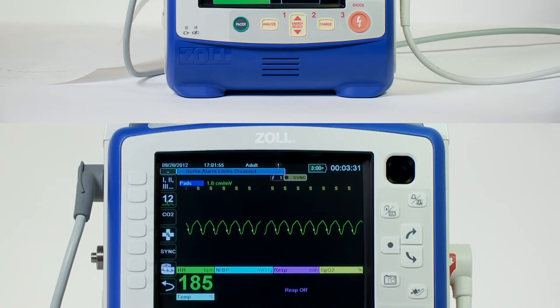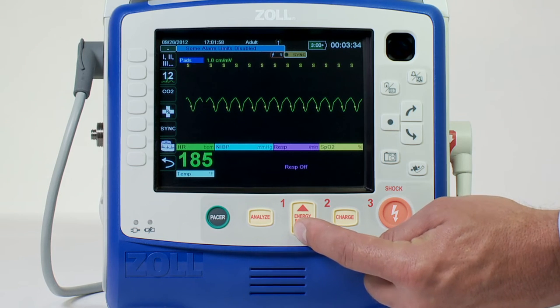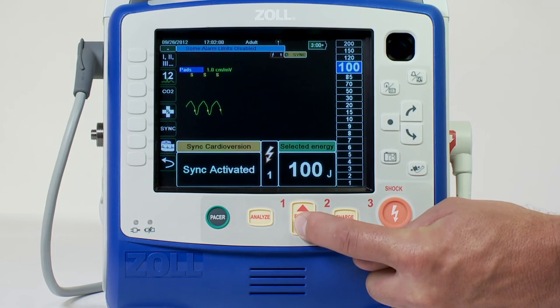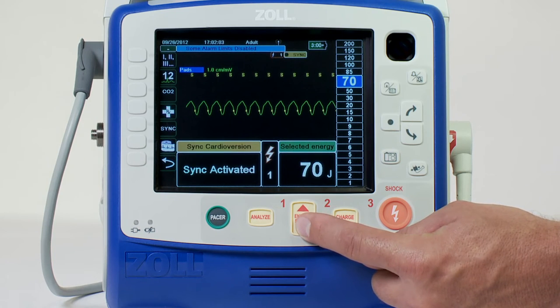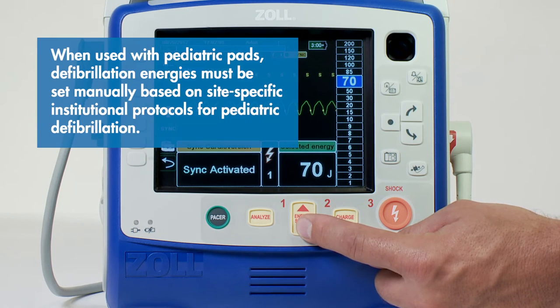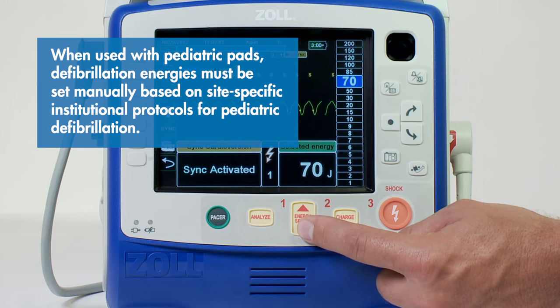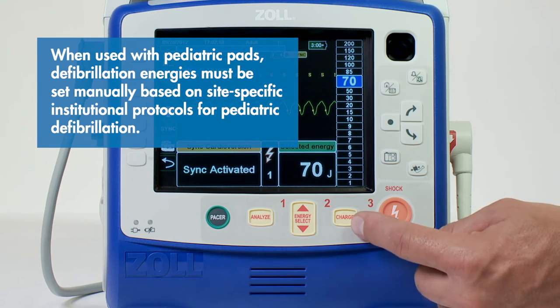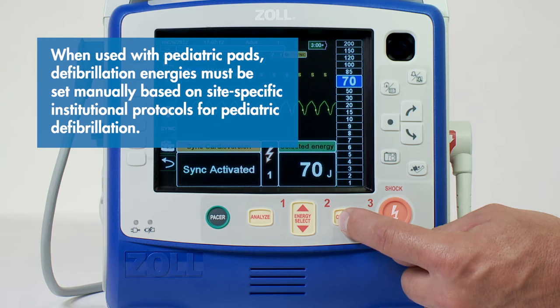Select energy level: press the select energy arrows up or down to select the desired energy level. These buttons are located on the front of the device. When used with pediatric pads, defibrillation energies must be set manually based on site-specific institutional protocols for pediatric defibrillation.